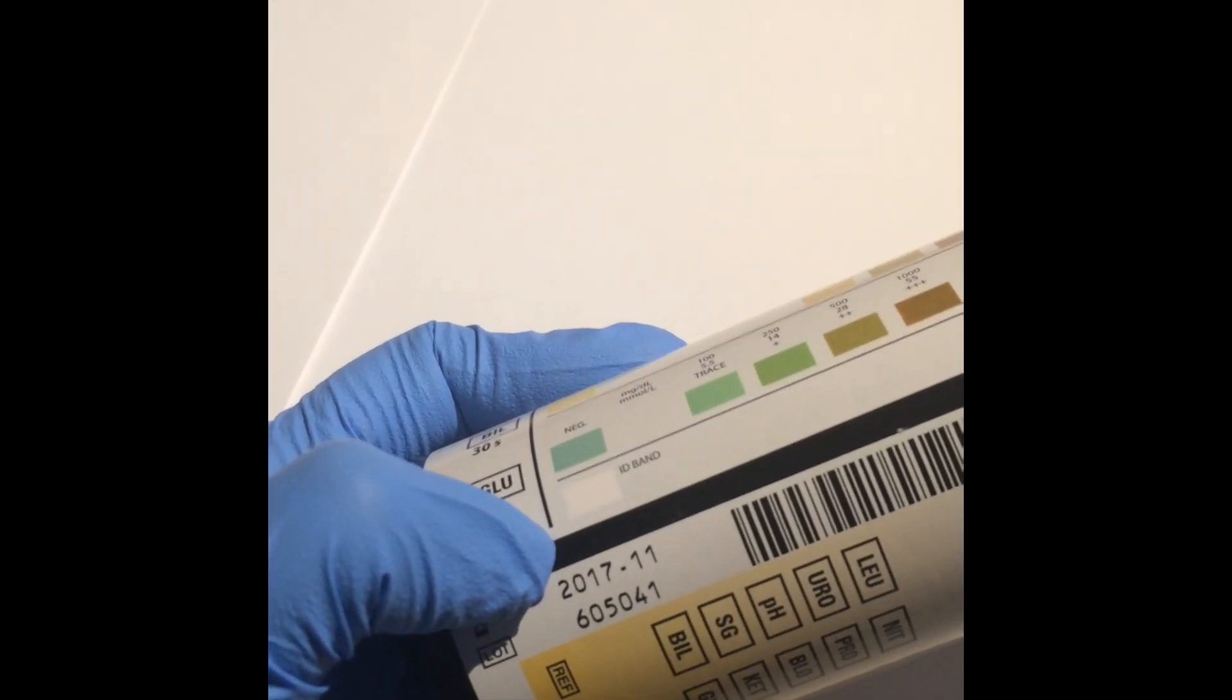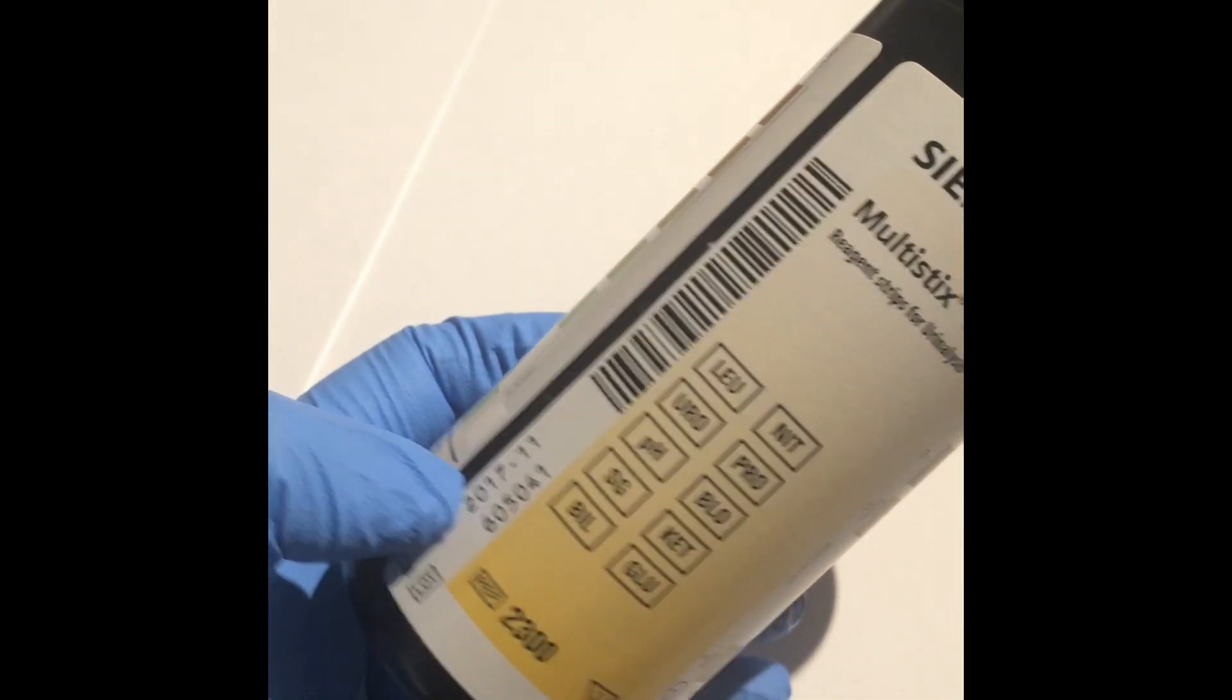Don't forget to check the expiration date of the dipstick. If it's expired, you might get a false result.